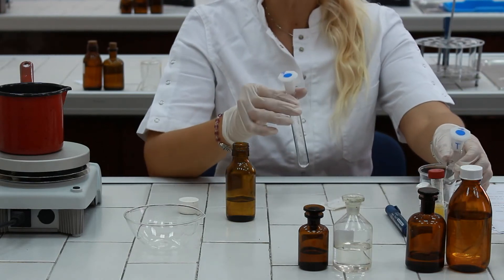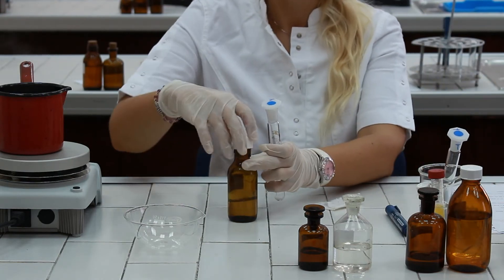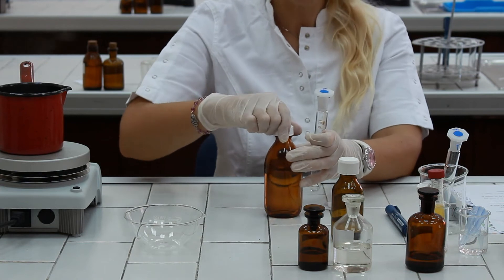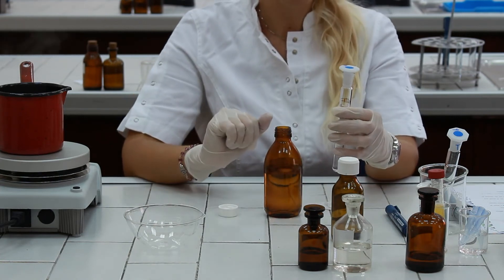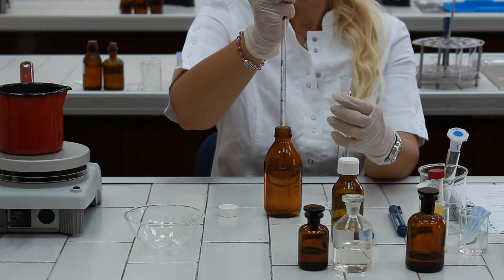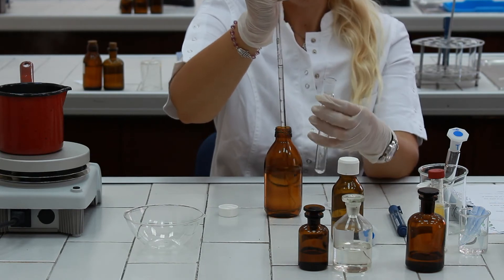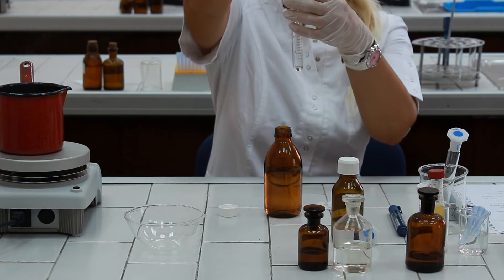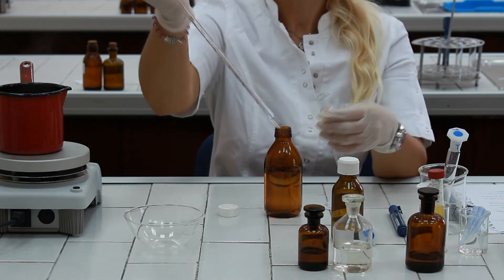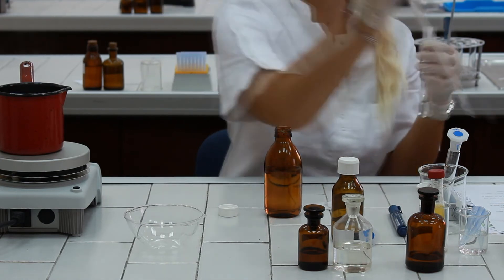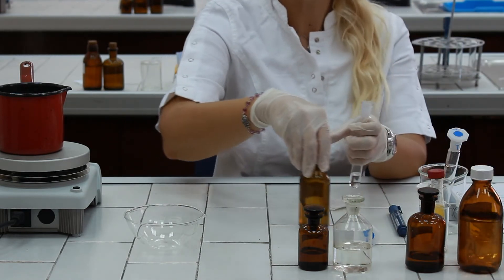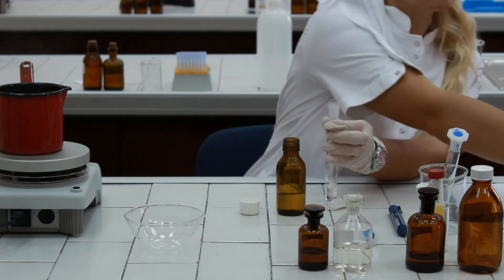Take another cylinder, mark as standard, and we have to add the standard cholesterol solution up to the graduation mark of 5. And then, we have to add chloroform again, until the graduation mark of 8.